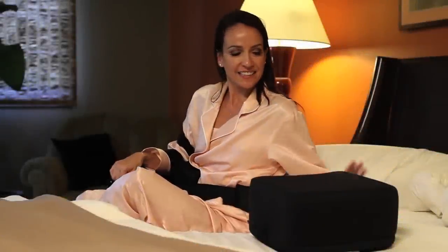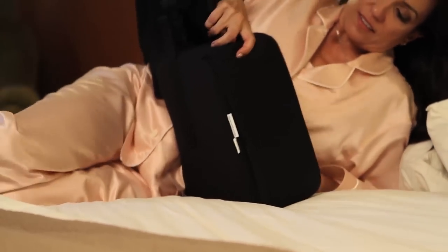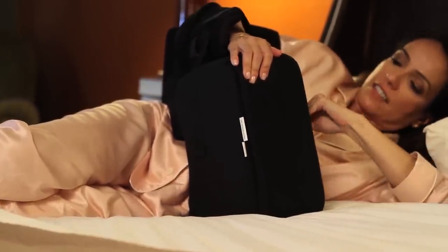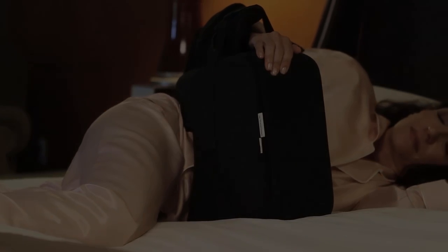For side sleeping, the larger bolster is used. This bolster has a large curved surface which goes against the body. Rest the cradle on top of the bolster and secure it using the velcro strip on the back of the bolster, with the wrist strap attaching to the front. This will help maintain proper alignment while sleeping on the side.